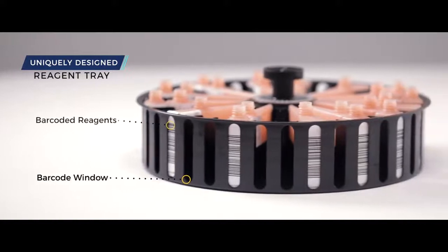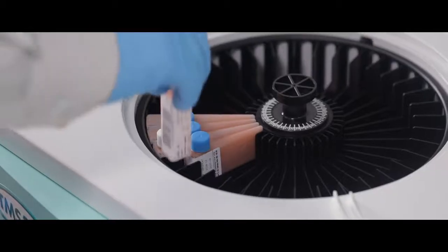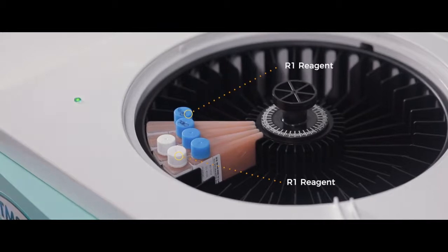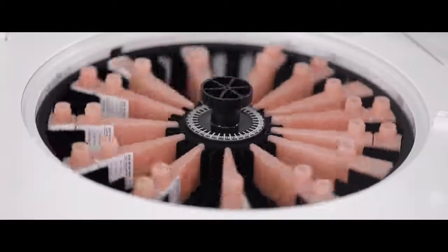The reagent tray has a unique design which can hold up to 36 double reagent chemistries with 24-hour refrigeration at 2 to 8 degrees.